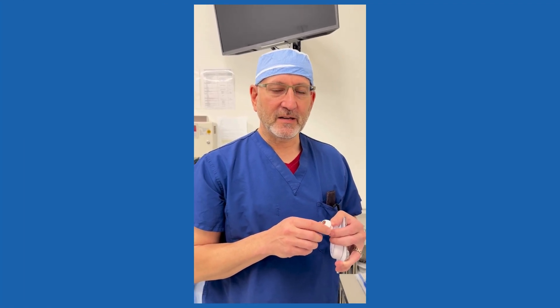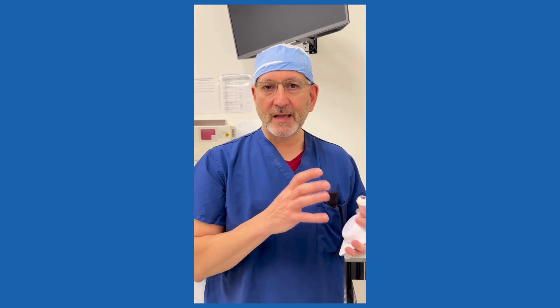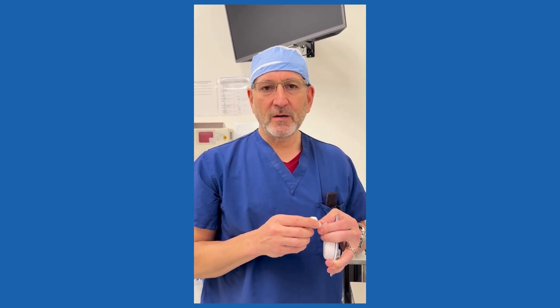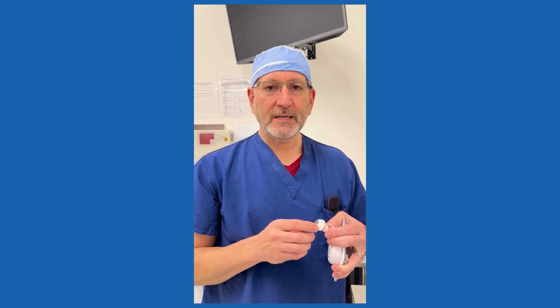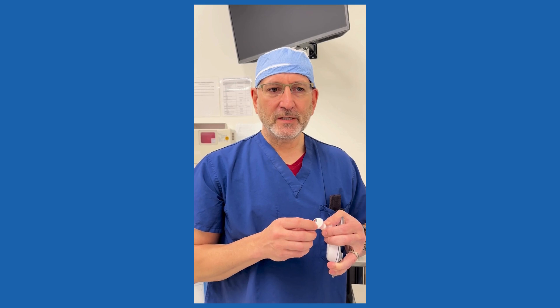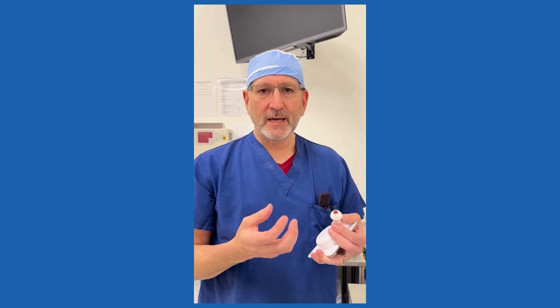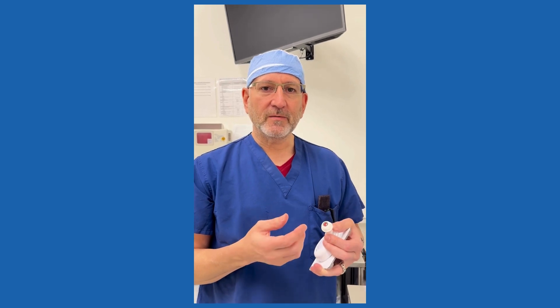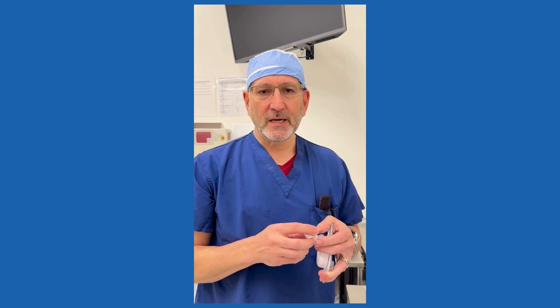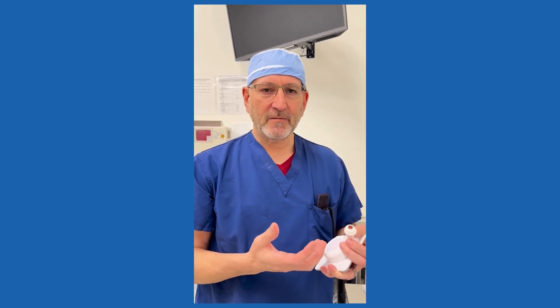Dr. Stoll here with Simuli. I just want to talk about some of our visualization models and the evolution of things over time. Originally we had our red reflex and anterior segment OCT model, and that was really just to show how to demonstrate the red reflex on a microscope and also to use intraoperative OCT technology like with the Zeiss microscopes. We didn't have a retina in there for visualization or anything like that.